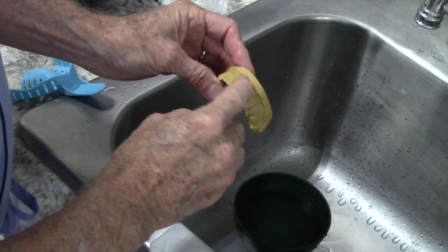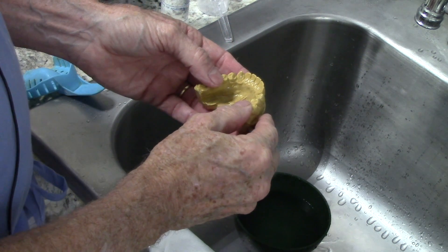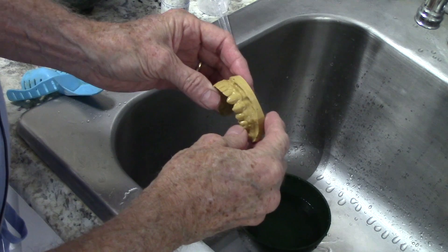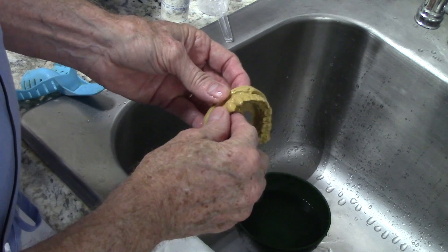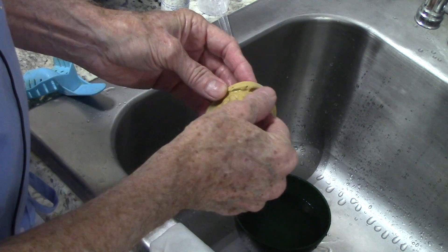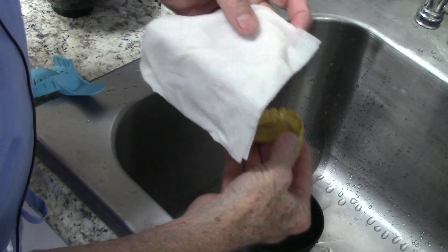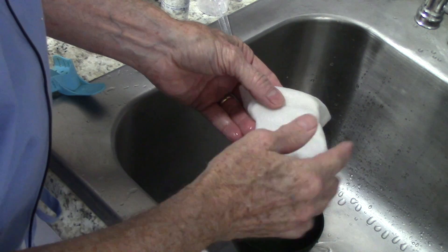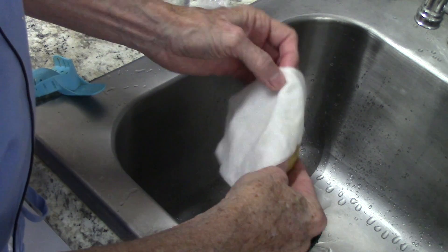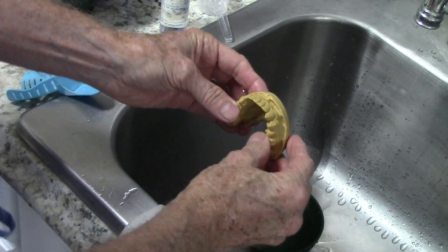Now this is a good stone model. If you have a model that's got a chalky surface — maybe they sent you a plaster model, or maybe they didn't mix up the gypsum well and when they poured it up it was too watery so it's chalky on the surface — instead of soaking it you can take a wet paper towel and put it over it and lay it in a little bit of water. That way the water will penetrate the model and fill up the porosity without degrading the surface.